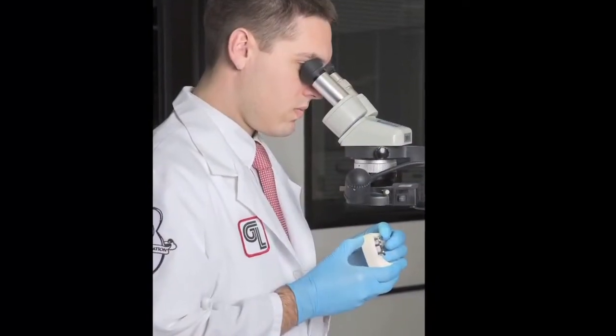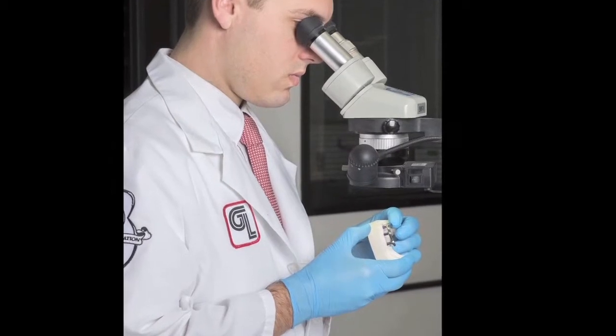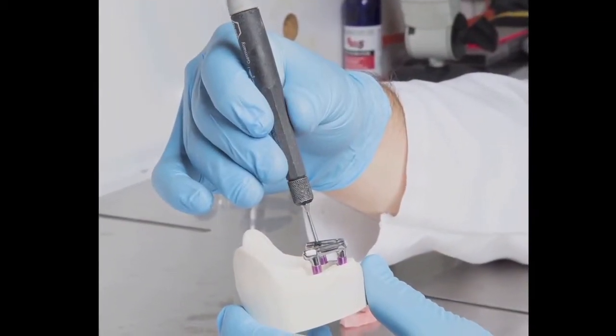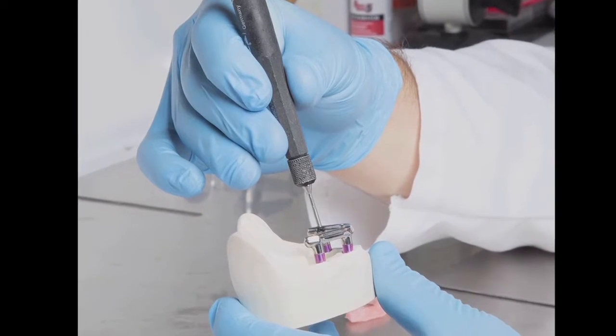The bar undergoes a final inspection and is fitted onto the physical master model to ensure a passive fit with no rocking and no gaps.